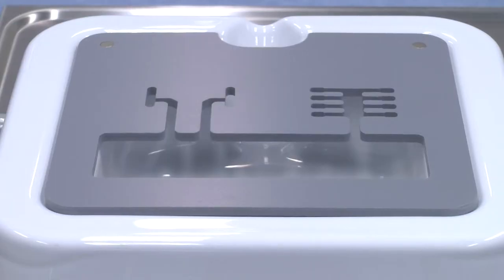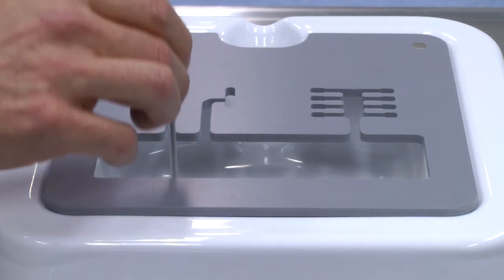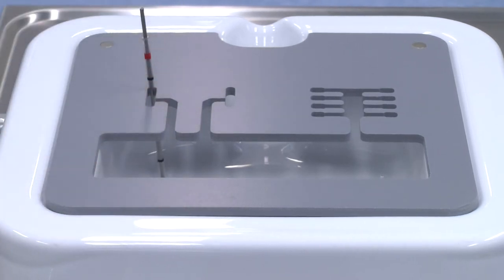After you've moved the blastocyst into the second solution, you can move the RapidStraw into the smart box containing the liquid nitrogen to cool down.